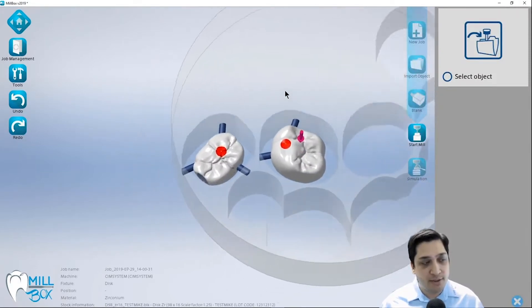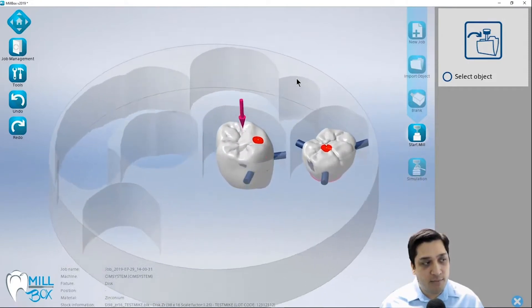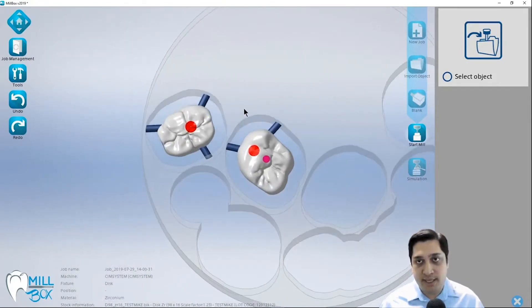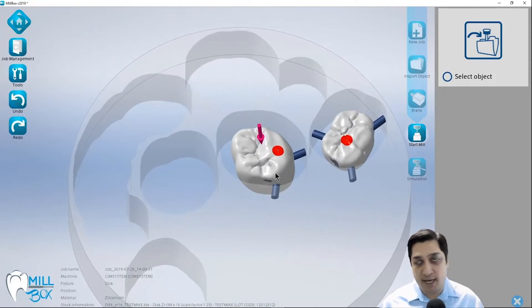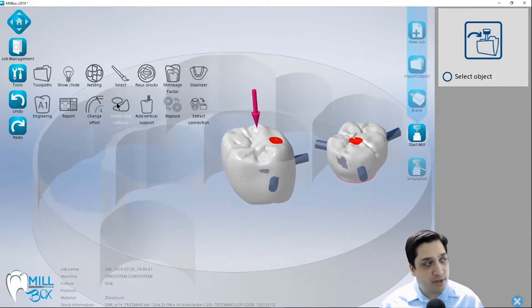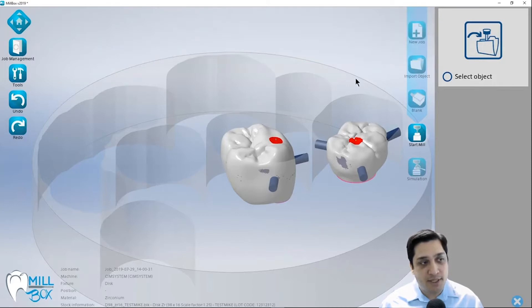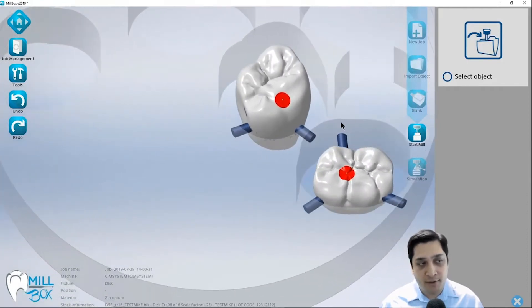I've got a couple of different visual layers turned on and you may notice more items on my screen than on yours. The very first thing I notice is this pink arrow pointing down at the restoration. When I click on it, this is showing me a secondary insertion direction that was detected. This is typically more for single unit hybrid abutments that have a top cap for a crown with an angulated top cap. In this example this is just a screw retained crown, so I don't actually need that secondary insertion direction. I'll remove it by going to Tools, Curves and Surfaces, then Delete Curves and Cylinder Caps and simply clicking on that arrow.